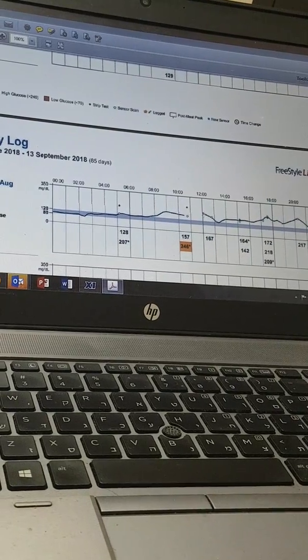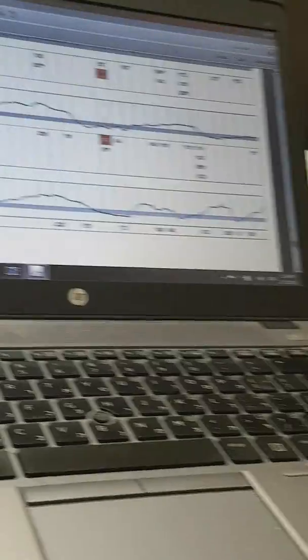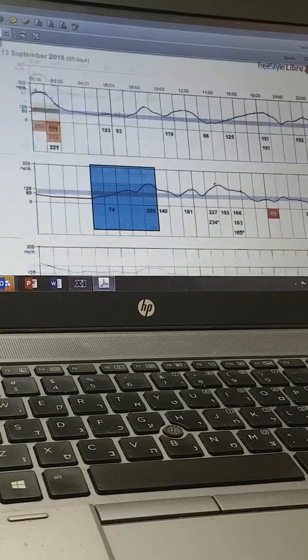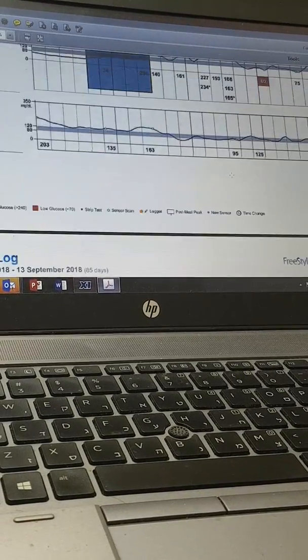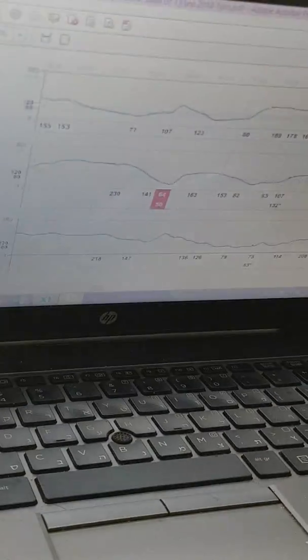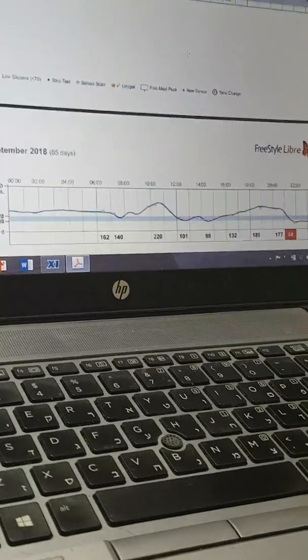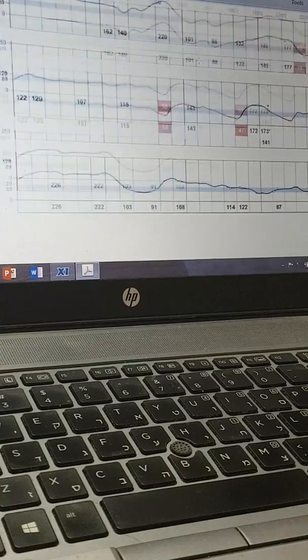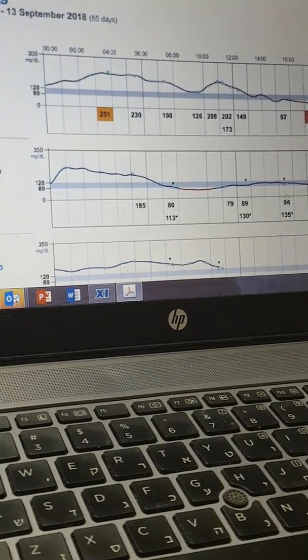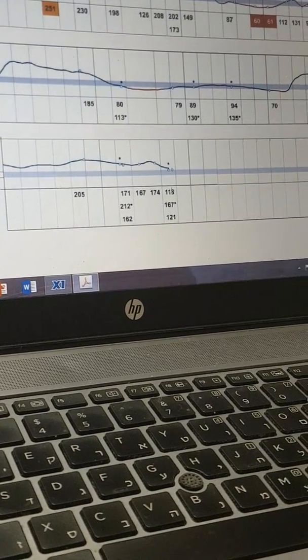I put a new sensor. When you have a full blue circle, it means it's a new sensor. Initially it was okay: 164 versus 142 from the finger — pretty close. But then it could start moving over time. Here it's still roughly okay. Then there's a difference but still acceptable: 288 versus 242. A sensor should last around two weeks — 14 days. And you see over time the difference starts to grow: 90 versus 130, then 118 versus 167.